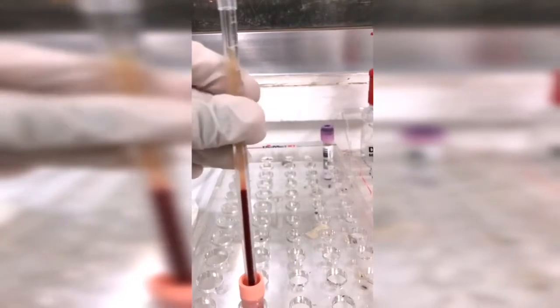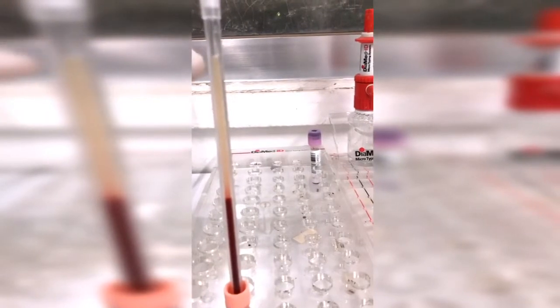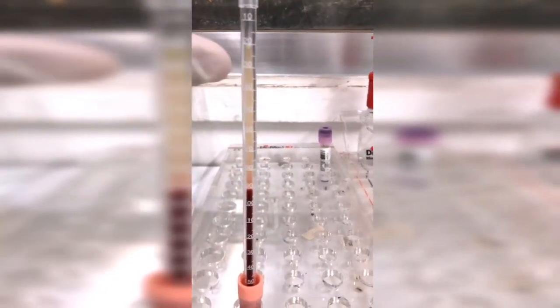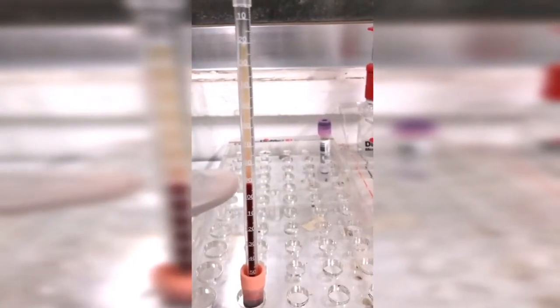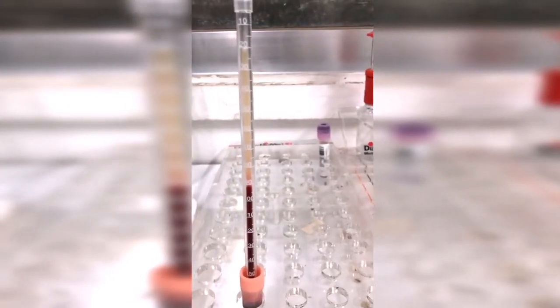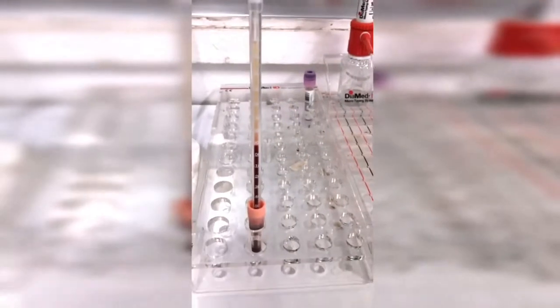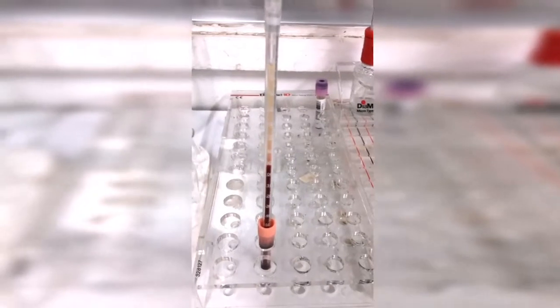Because if I turn and I'll show you, there is an empty space here, which means the plasma has started to sediment from this point, not from here, whereas the blood was filled from here till here. So we can say that this much area needs to be subtracted from the total amount. So if the total amount is 90, we will remove this point, which is 20. So the final ESR value is 70 millimeter per hour, which is a high value compared to both over 50 years of age or below 50 years of age. And we can say that the patient is suffering from some type of inflammation or infection.